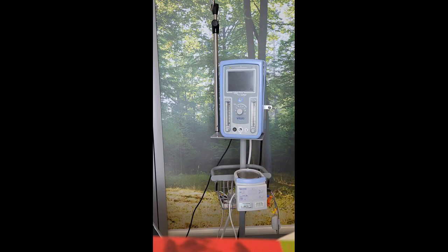Here we have our infant flow CPAP machine, which is used to deliver CPAP to our children on the unit. We're going to show you how to set up the machine correctly and calibrate. First of all, you would leave the machine switched off, attach your oxygen and your air to the wall, and plug in your humidifier and your CPAP unit to the wall.